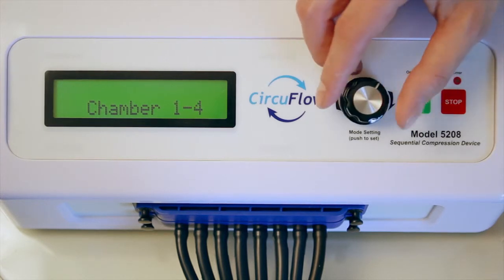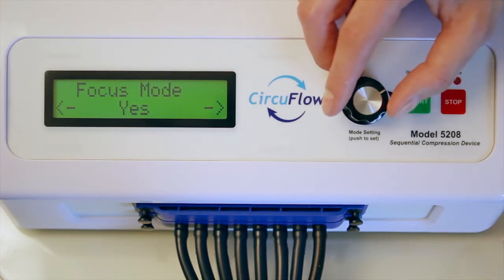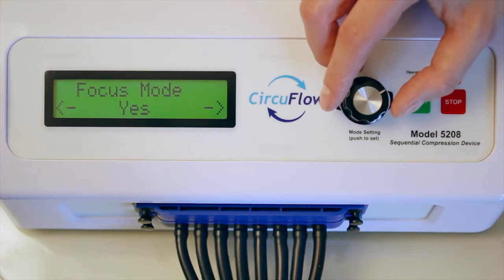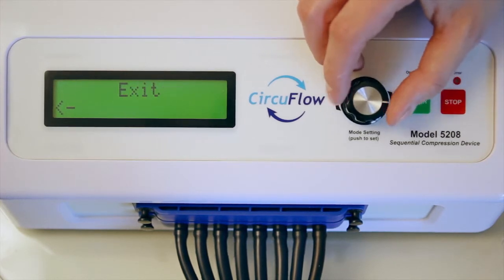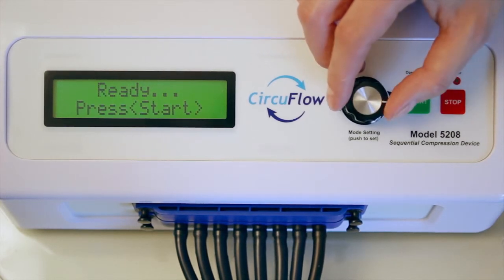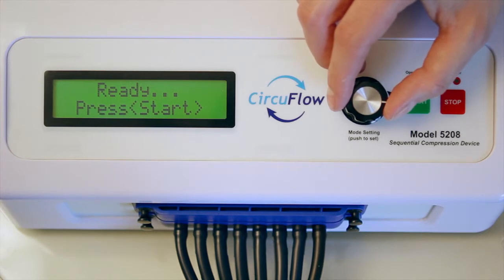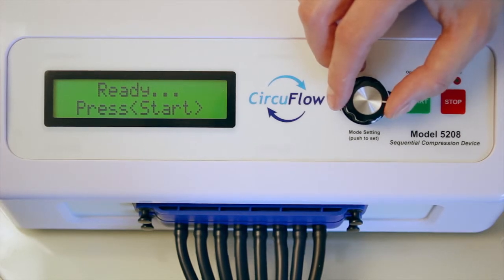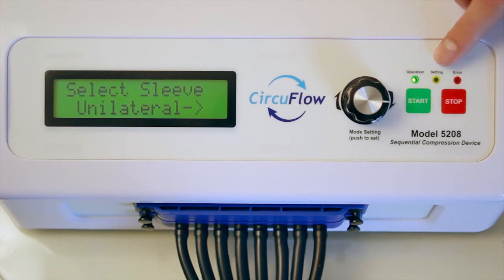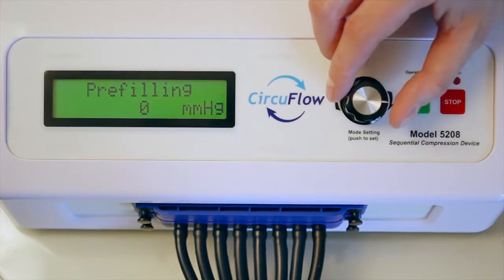To exit and complete pressure mode setup, turn the knob to the right and push to select exit. Turn the knob to the right in therapy setting mode until you see exit and push to select. You will be taken to the start display. Push the green start button to start your custom treatment.